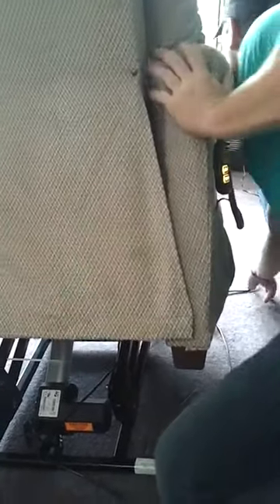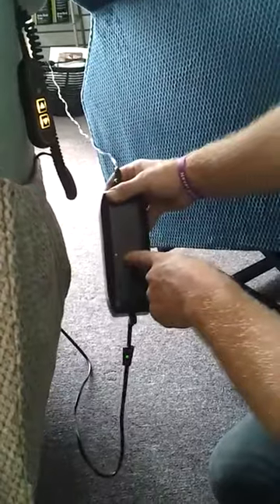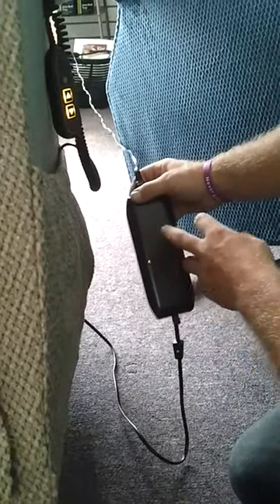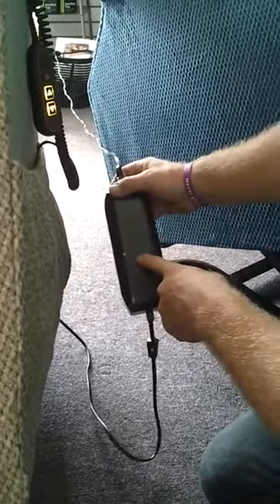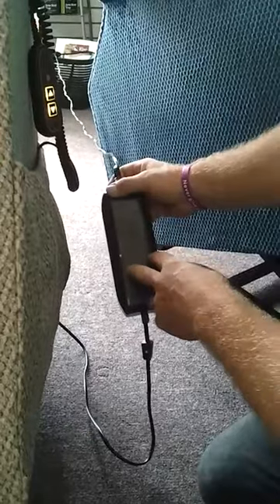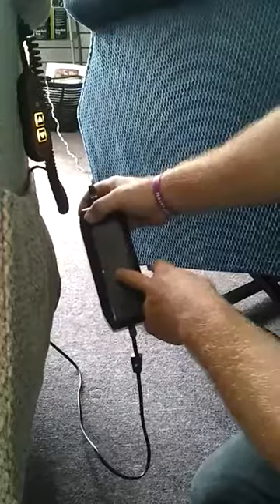The transformer is right here. You have a green light, which means power is coming from the transformer — the green light on the DC power transformer means power is coming from the outlet. If it ever starts blinking or making a humming noise, your transformer is getting too much power from the outlet or not enough. Call your technician or electrician to check the outlets, and you would probably have to replace the transformer to avoid ruining it.